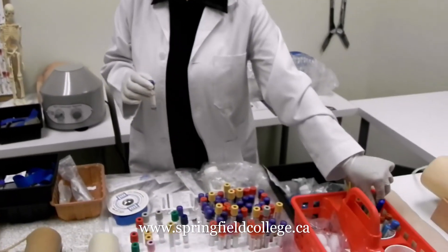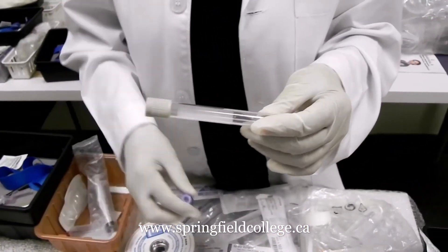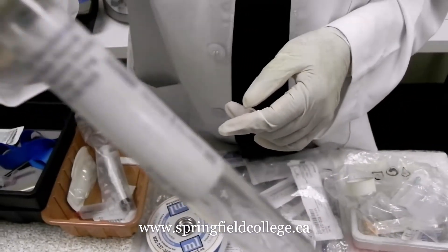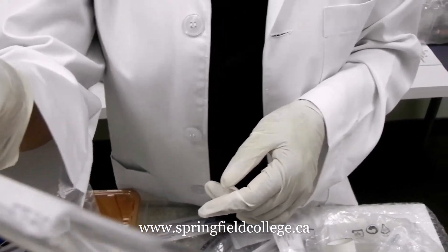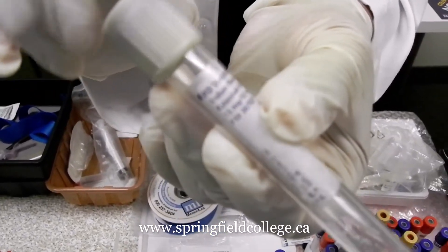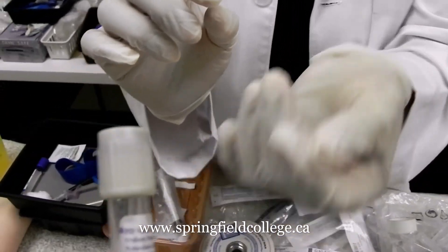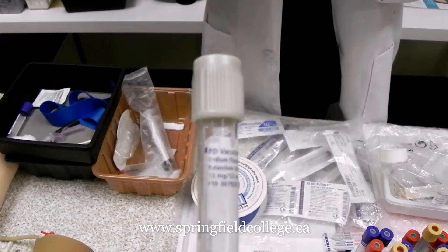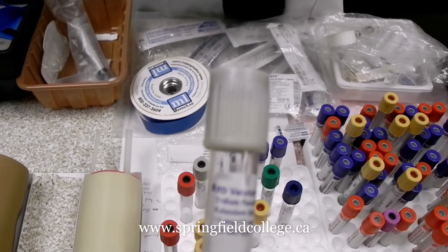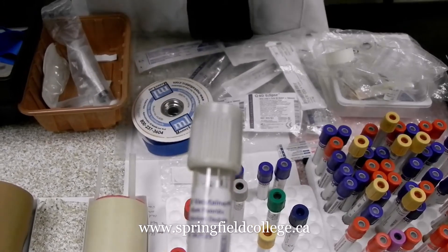The last tube we are coming to is the sodium fluoride tube — the gray top tube. You can see there is a little bit of powder inside. We commonly use this for diabetes, alcohol level, and endocrine metabolic disorders. So this is the last tube used for collection.